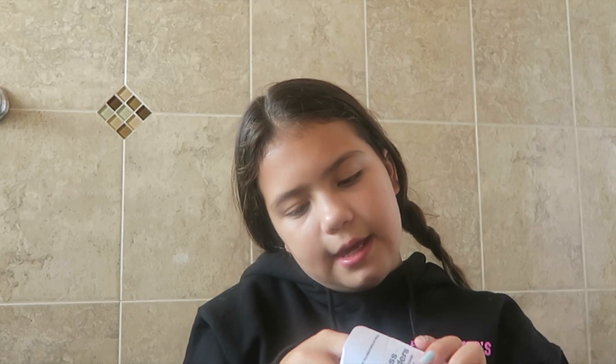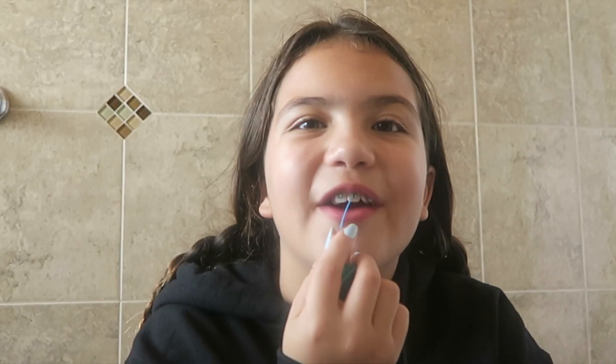The next thing which is really important is flossing. So this is a little thing that has floss in it and you rip it and then you'd floss. But it's really hard to floss when you have wires because the wire does not let you get in between your teeth to take the food out. So every dentist gives you these little things that come in this little paper. They have a hoop at the top and a stick. What you do is put the floss through it, stick it in between your braces, get the floss off the stick, put it in between your teeth and get the food out. You have to do this every single night before you go to bed because if you leave food in, it's just disgusting.